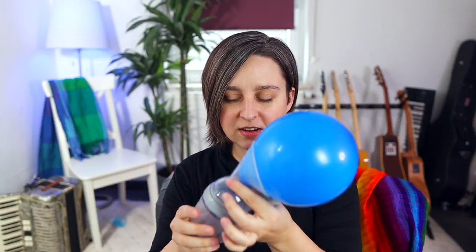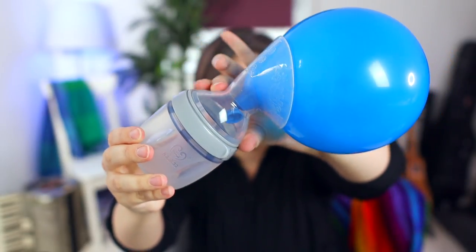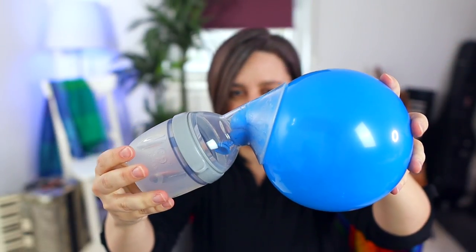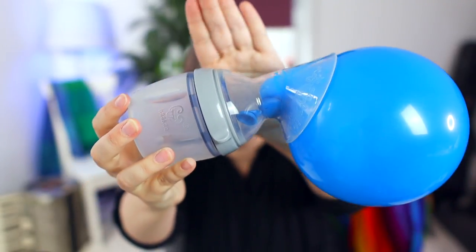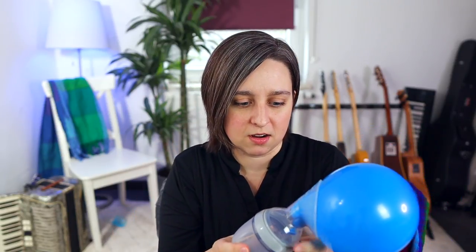The Generation 3 has the strongest suction of any of the Haakaas. The top is really similar to just the traditional Haakaa. The thing with this though is the bottle part down here — you can see it's not distorting the top as much at all as the other one. This isn't coming down and pinching the nipple at all. Look at that suction — it's pulling, it's crooked. Don't put it on crooked like this, but that is some really, really strong suction and you don't get the warping on the top. If you don't want it that hard, don't squeeze it that hard.